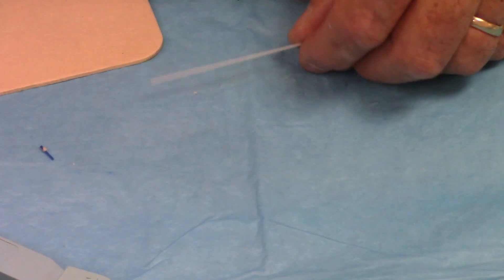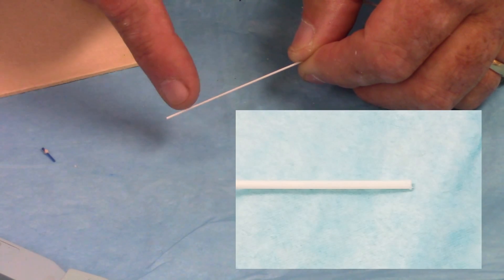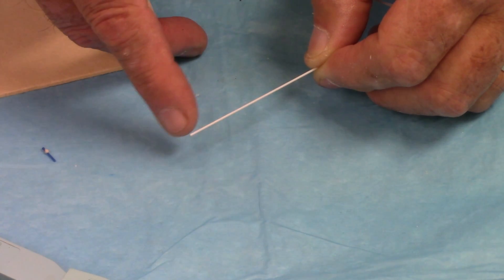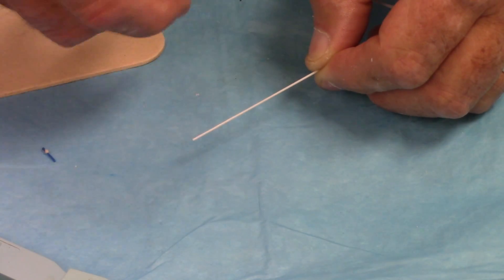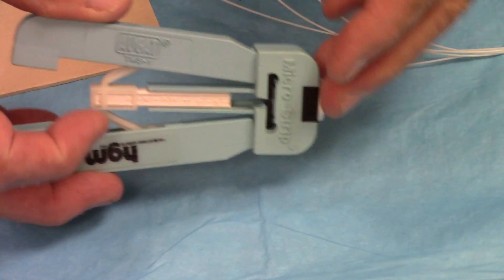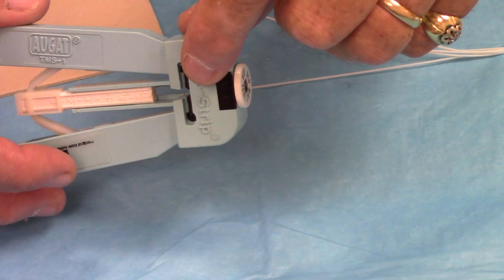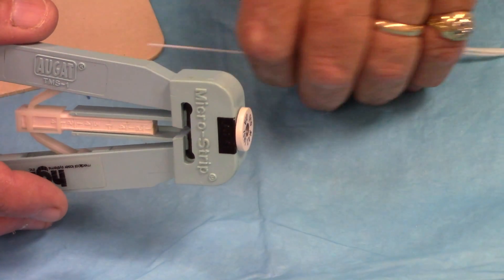I don't have a stripper that fits this Holmium YAG fiber, so I'll switch over and do that on a larger Neodymium YAG fiber. Here's a 600 micron fiber from a Neodymium YAG laser — I'll show you a close-up of this tip. The plastic cladding goes all the way to the fiber tip, and generally on larger fibers like this that generate heat you want to eliminate that, because the plastic will ball up and curl up, keeping it from being easily withdrawn from scopes. So you get rid of not much — maybe one or two millimeters out of the end. You have to size the stripper according to your fiber size, because you want to strip the plastic but not cut the fiber in the process.